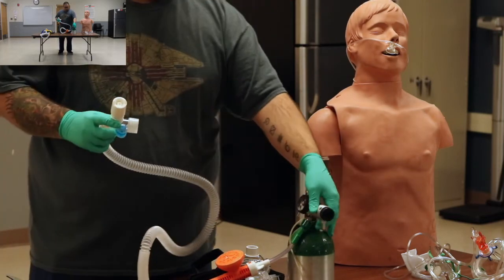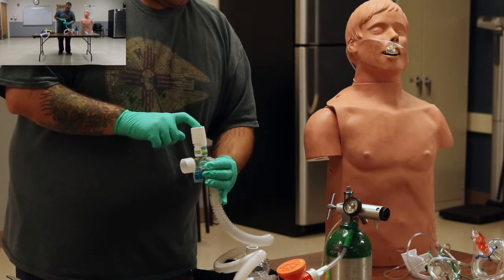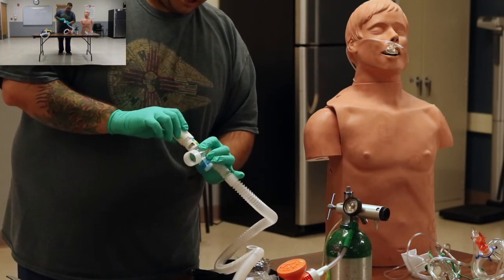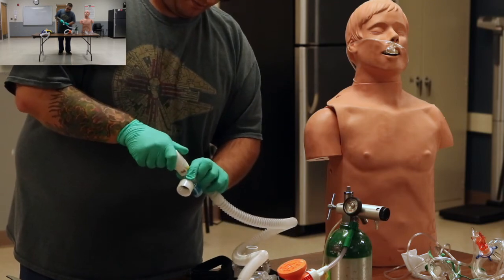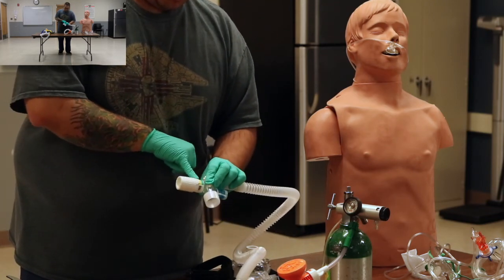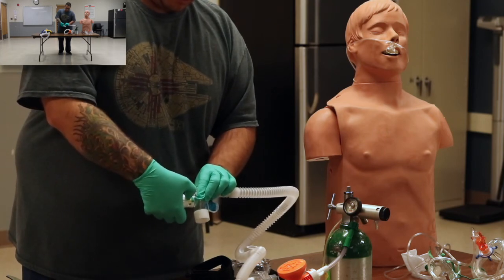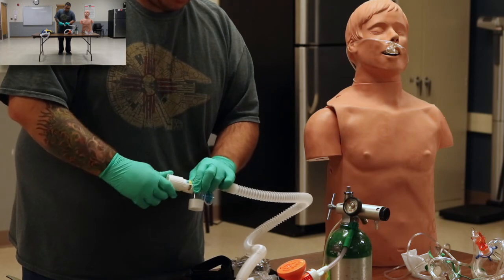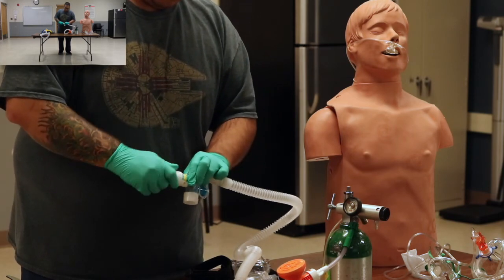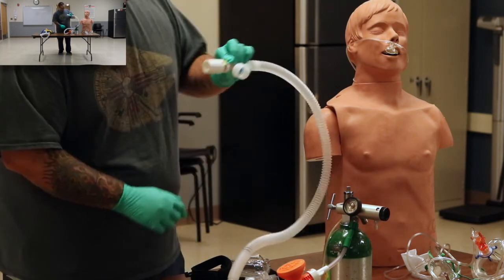So you're going to hook this up. Your PEEP is adjusted with this white knob. And we have it set at about 5 right now. And then to adjust it, we just turn that. And then how we know which PEEP we're at is this little white tip right here will be measuring the different colors that are on that. So these come in 5 PEEP, 7.5, and 10 PEEP. So we'll start off with 5.